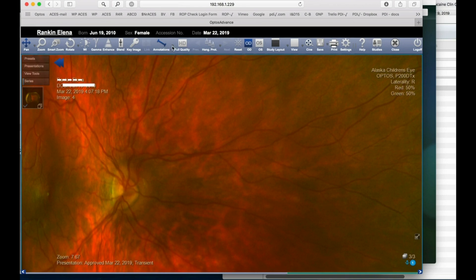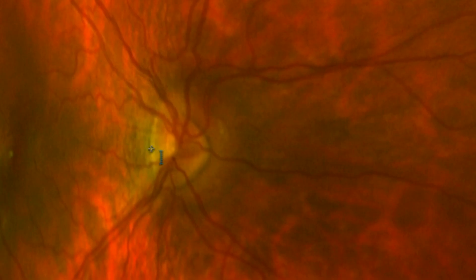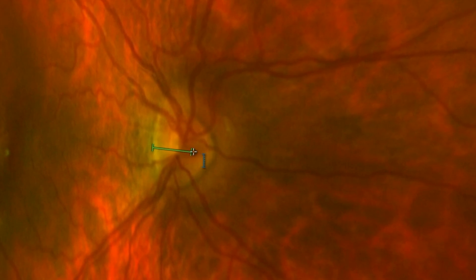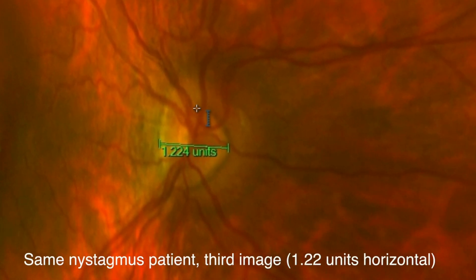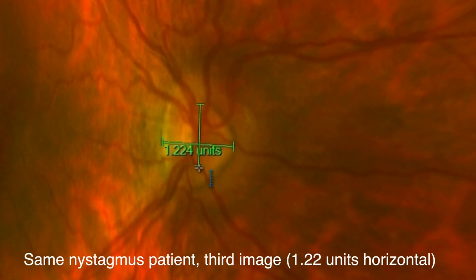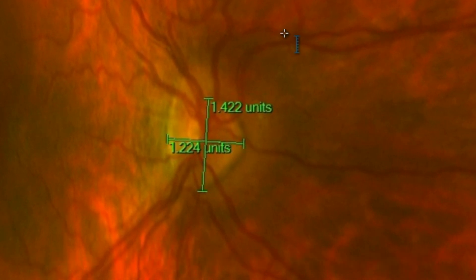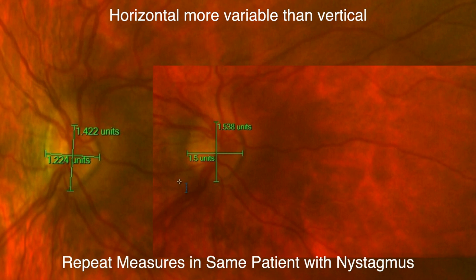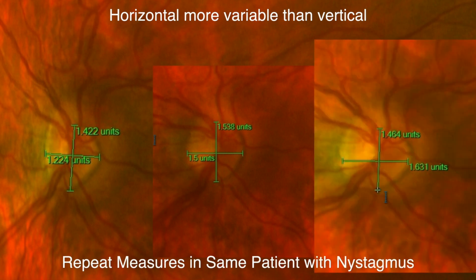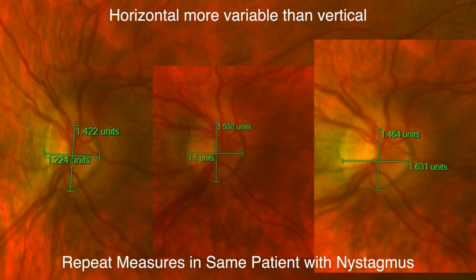However, if the nystagmus is traveling against the scanning laser, the width of the optic nerve may appear very narrow, with the vertical dimension much more reliable. Again, in the presence of horizontal nystagmus, the vertical measurement is less variable.